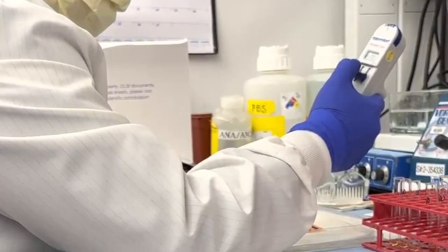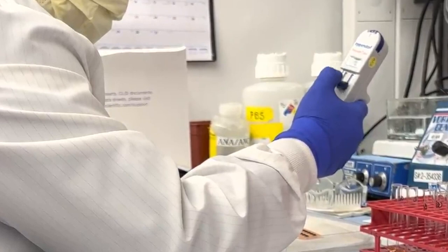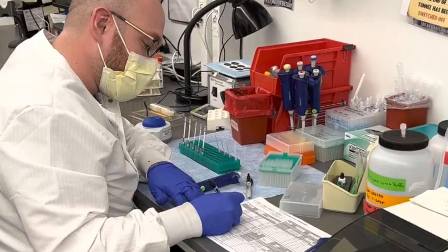Here at UR Medicine, we perform bacteriology, immunology, mycobacteriology, mycology, parasitology, serology, and virology testing to assist clinicians in the diagnosis and management of patients with infectious diseases and immunological disorders.